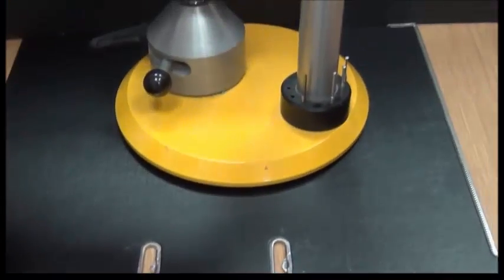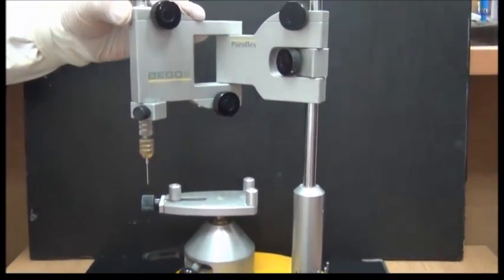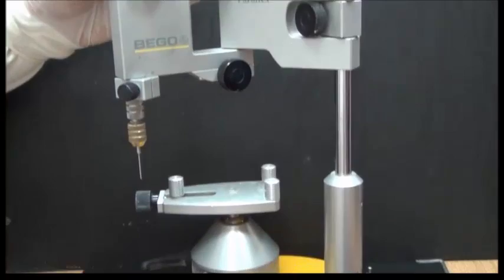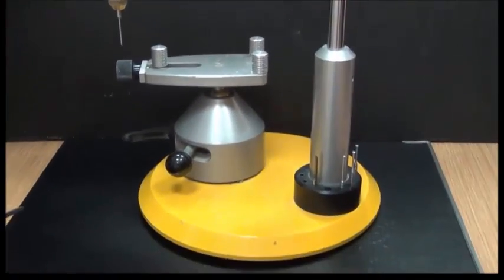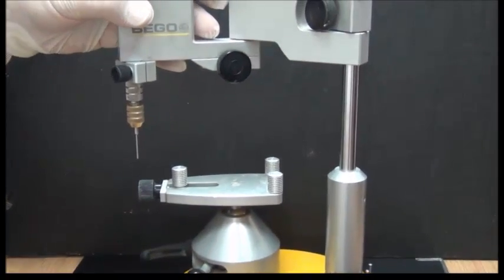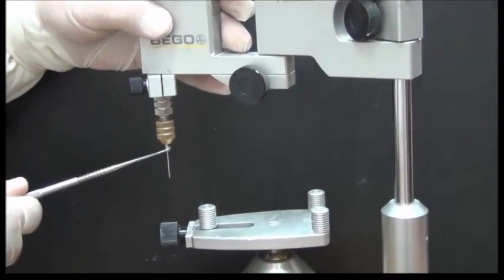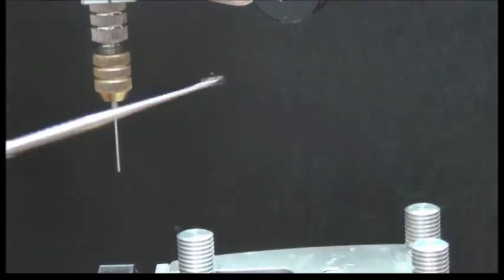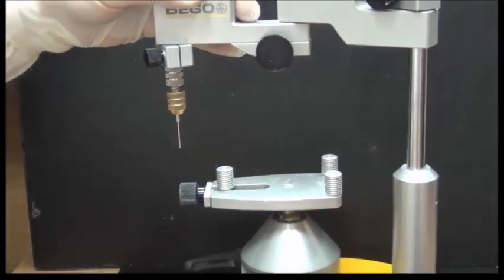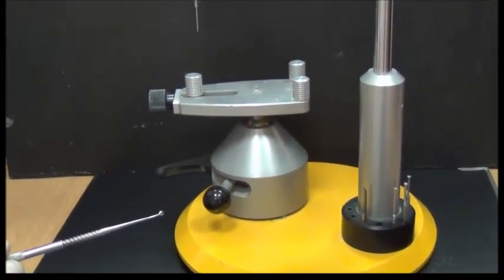Our tool for today to decide and look at the cast in a systematic way is called dental surveyor. The dental surveyor is a paralleling instrument used in the fabrication of removable partial denture. What do I mean by paralleling? I mean that any position I place this instrument coming down from the tool, the surveyor, at any position, these positions are all parallel with each other at all these locations.